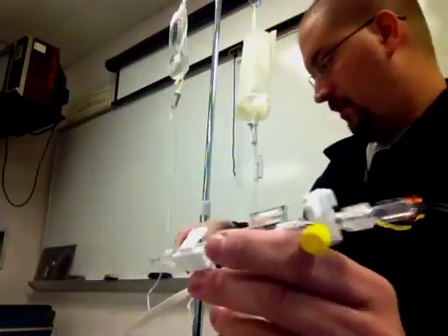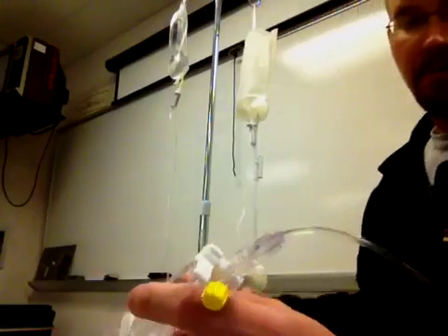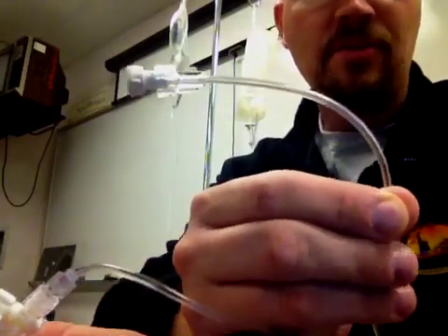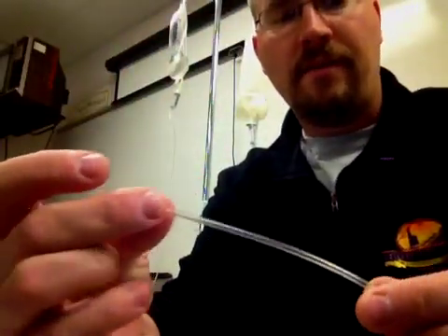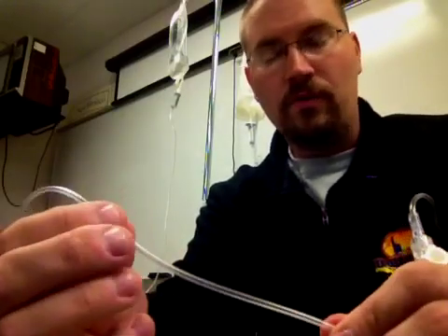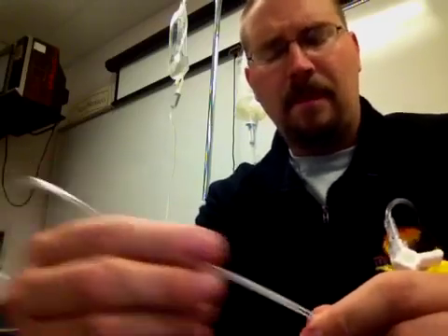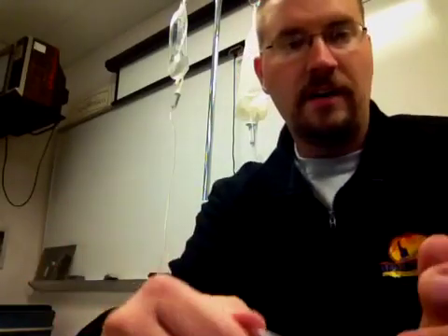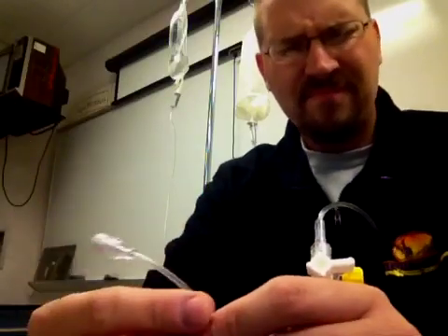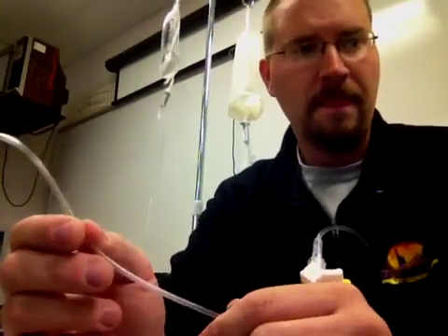I'll show the bottom part here for you. This little connection looks kind of like IV tubing, but you'll notice the tubing has a very hard non-compliant feel to it. We actually want this tubing to be very hard and to be non-compliant, as opposed to the typical IV tubing which is more of a plush feel to it. It's going to be very important because this is actually hooking to the distal part of the invasive line, be it maybe something in my subclavian, a pulmonary artery catheter, a central line, or maybe I have an art line in place. We'll talk about those separately in different videos.